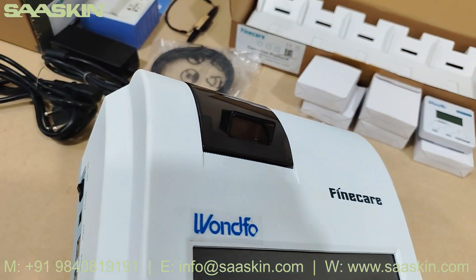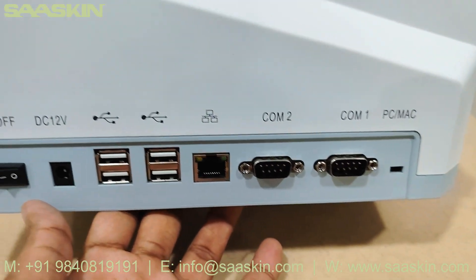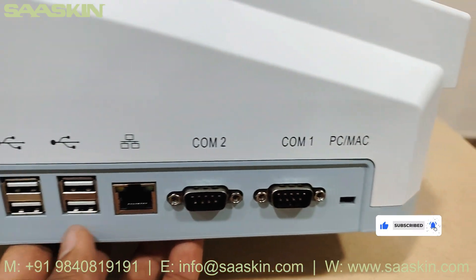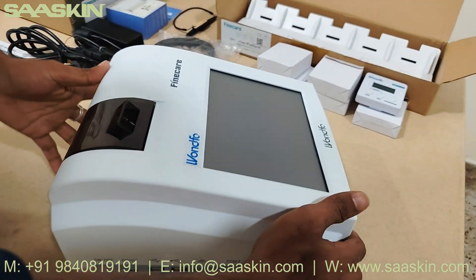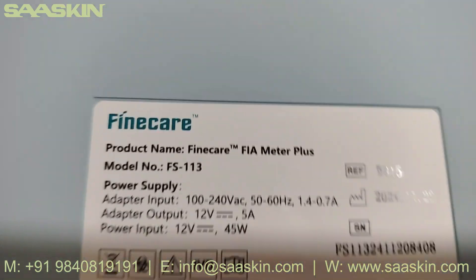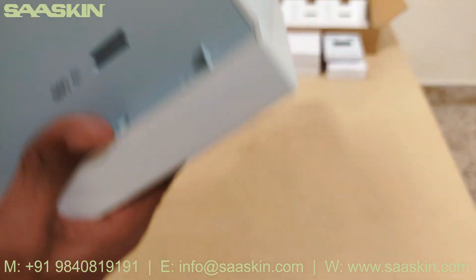On one side, this is where the printer goes and the printer coil sits inside. On the sides you can see the different power sockets, the on/off button, the voltage button, USB cables, ethernet cable, and COM port cables. At the back side you can see the case vent, and the label showing the model, supply number, and all details — this is a Fine Care product made in China.